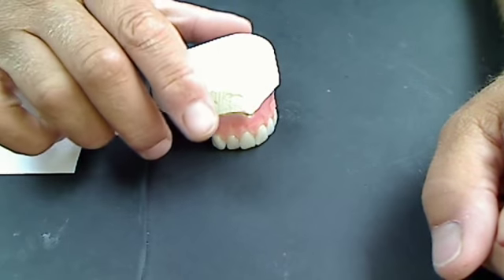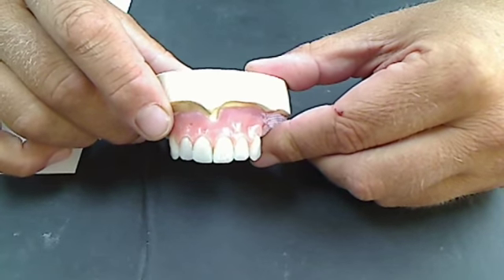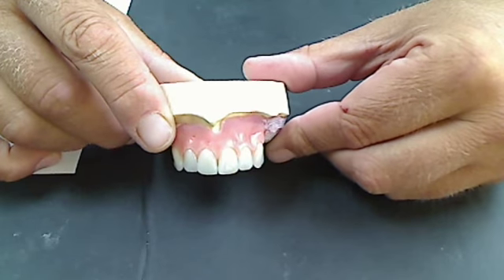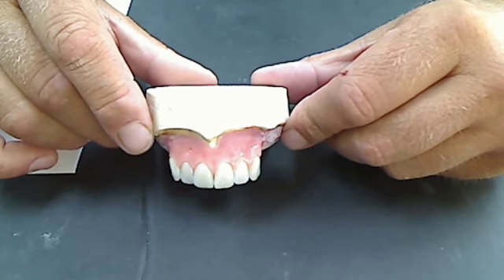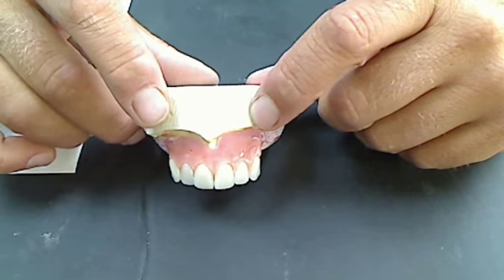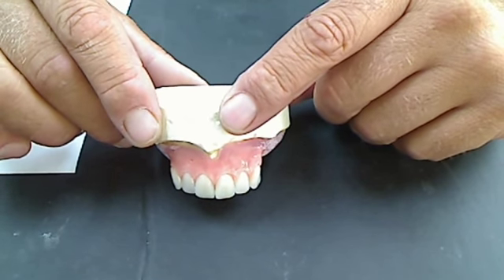I'll talk a little about contour. Contour is probably right now the hottest topic in dentures. Everybody wants to contour their dentures to make them look natural. I think that's wonderful. I've been doing it for years. There's a bit of an art to it and also a bit of common sense — I rely on a little of both. I just set some teeth here so I have six teeth to point things out as we go along.